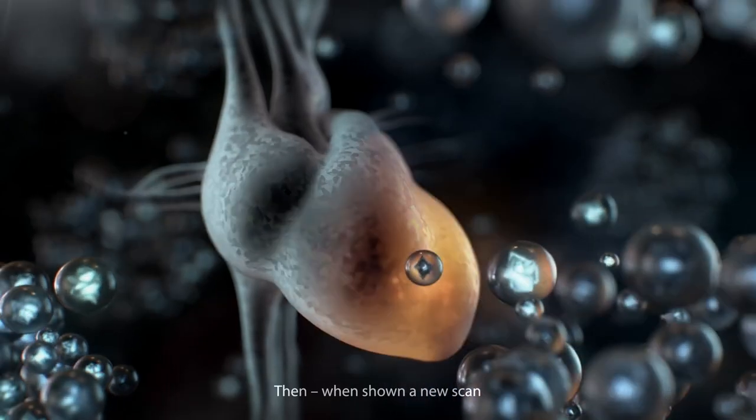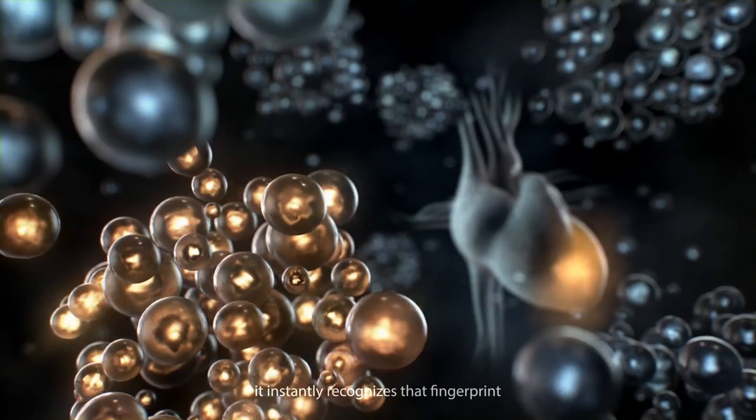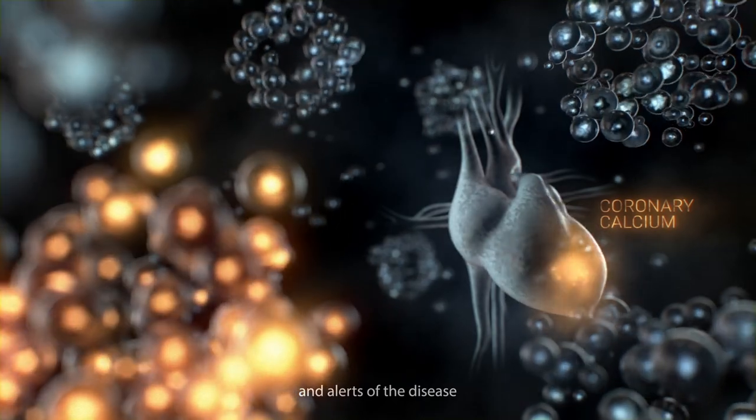Then, when shown a new scan, it instantly recognizes that fingerprint and alerts of the disease.